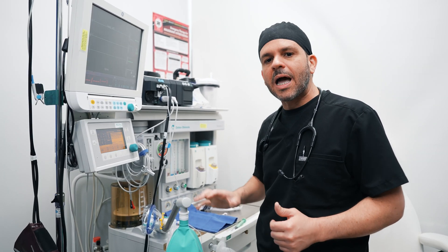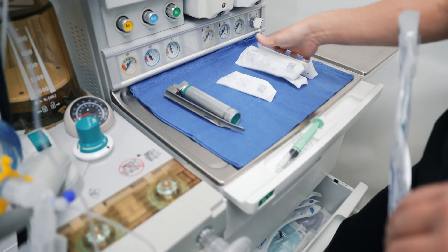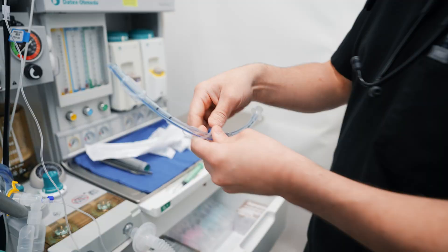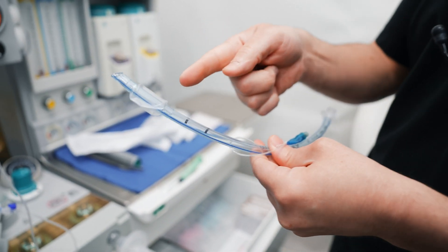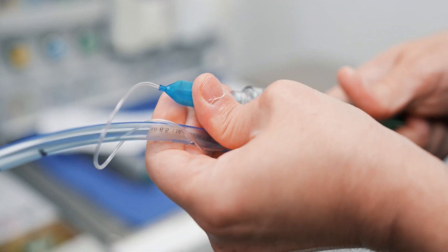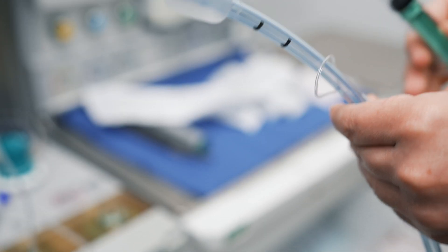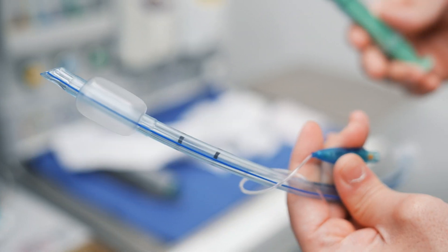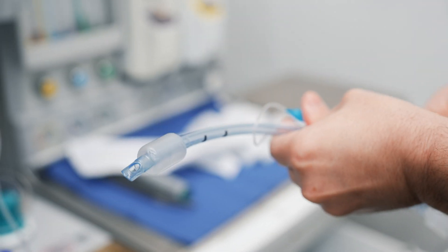While it's calibrating, I'm going to start setting up for my first case. I grabbed some syringes, some needles, and an endotracheal tube. One thing I check is the little balloon on the tip — this balloon is going to secure it in place in your trachea. I always check to see that the balloon is inflating, staying inflated, and not leaking in any way, because these can come defective, although very rare.